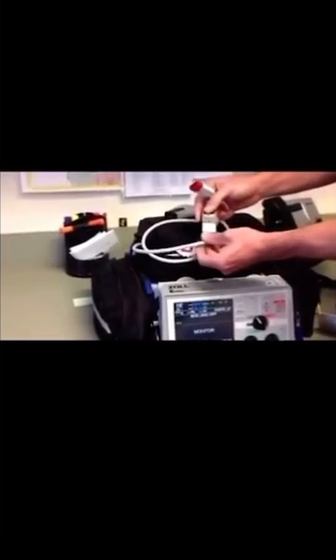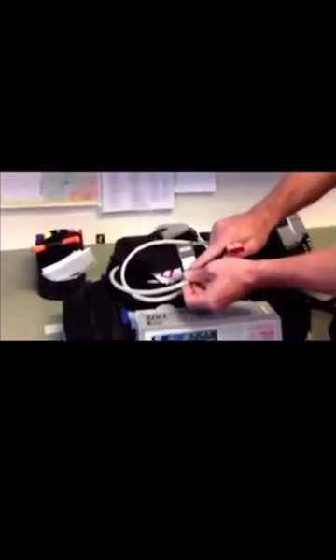Step two: get the white wire out of one of the top pouches and disconnect the plug from the defib pads. Place the white plug in the black test port. The sticker says to test defib at 30 joules.